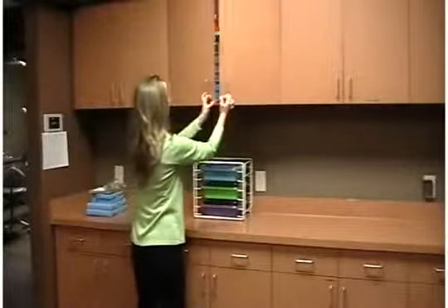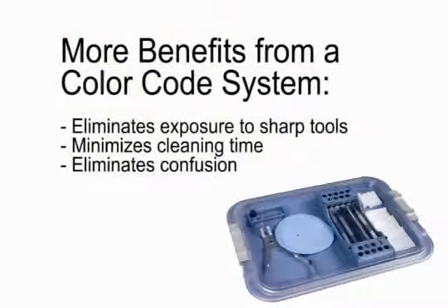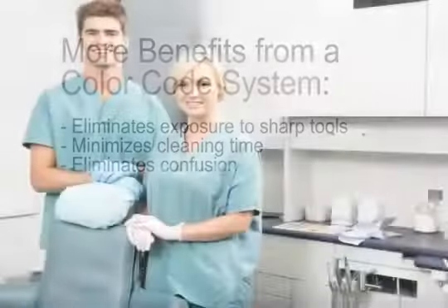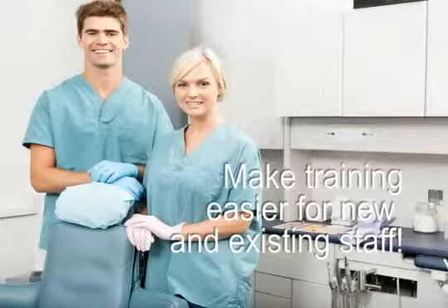There are no loose instruments or tools that need to be individually cleaned, and that eliminates exposure to sharp tools, extra time in cleaning, and trying to remember which item goes with each procedure. Training also becomes simple because you are able to teach these processes by explaining the color code setups compared to each instrument and tool that needs to go with a specific procedure.